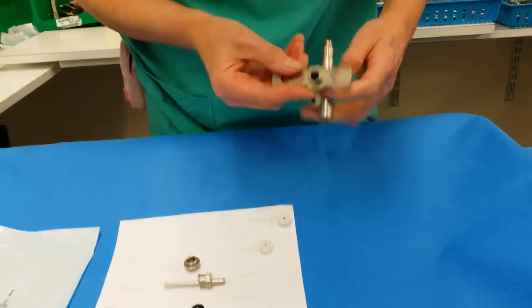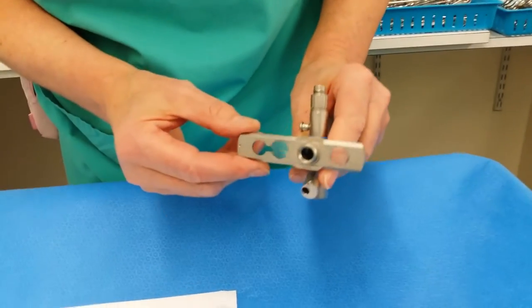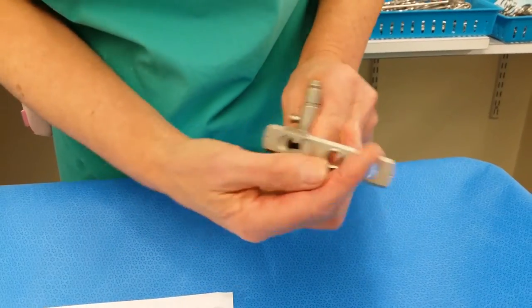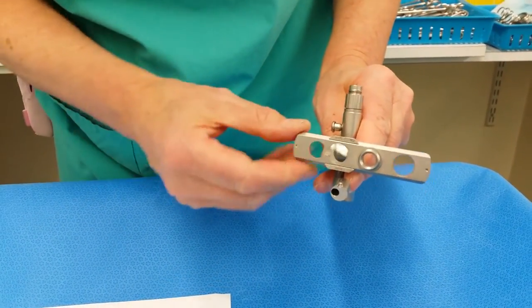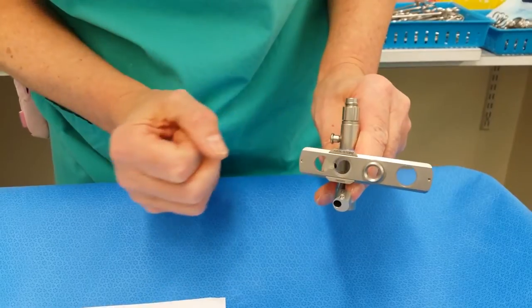This connector works so you can work through the channel, and you can slide it so you have glass for when you insufflate, when you ventilate the child.